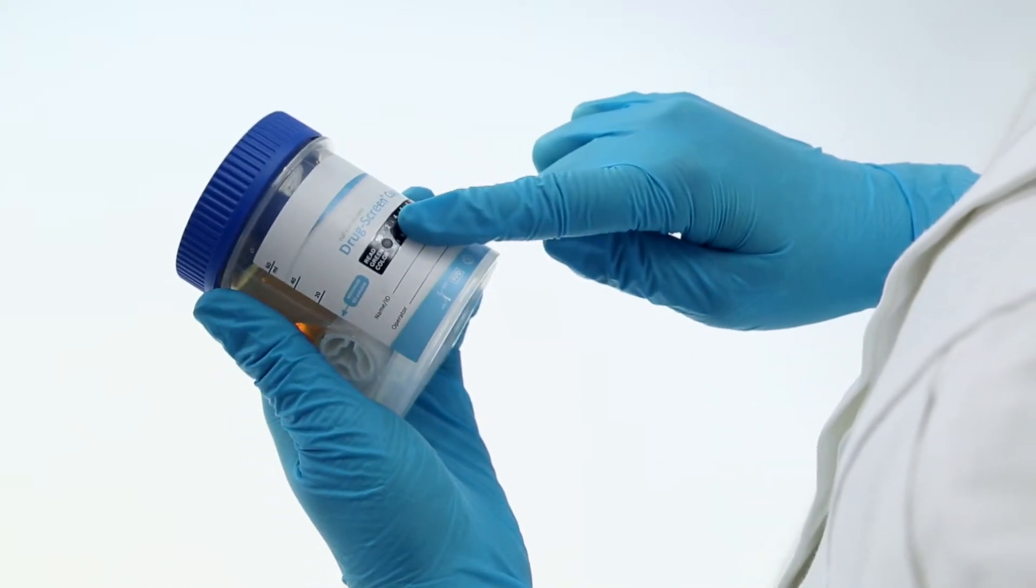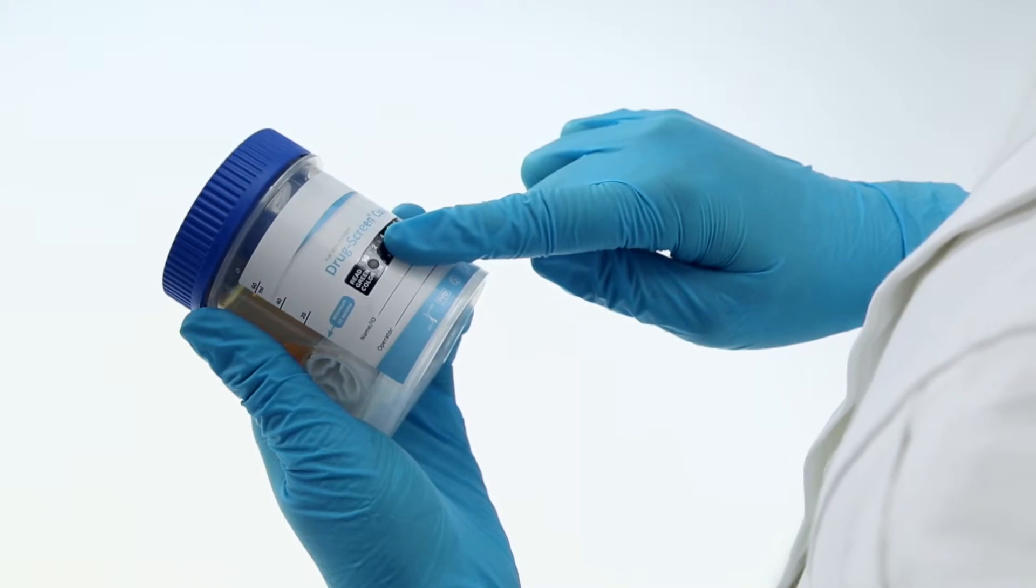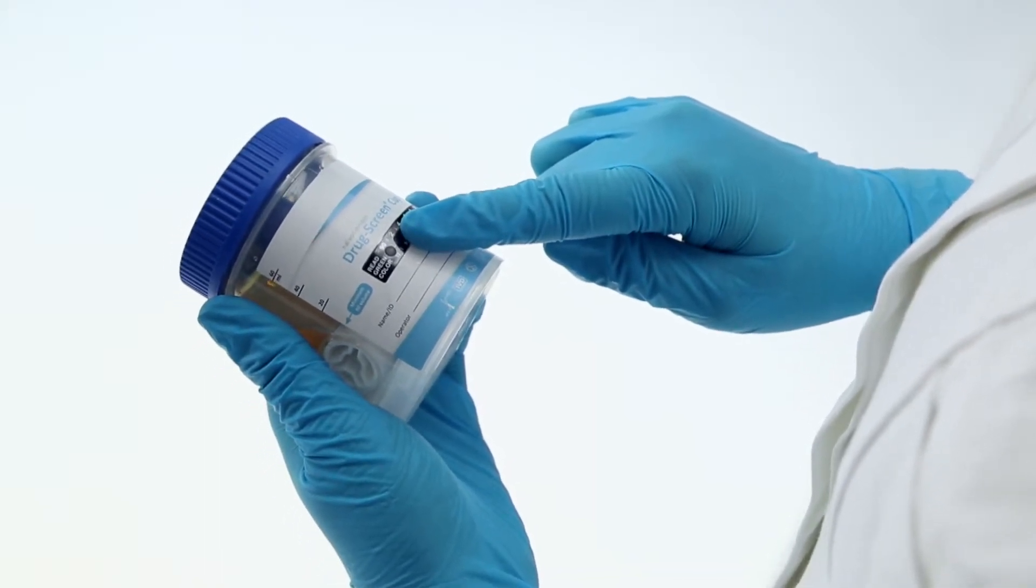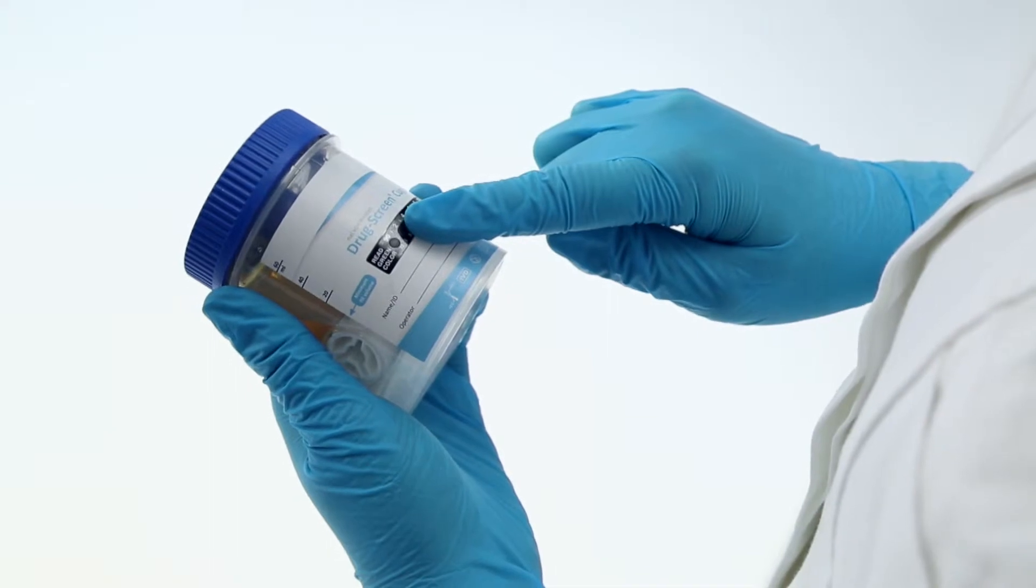Temperature strips integrated into each test indicate where the samples are fresh, that is 32 to 38 degrees Celsius or 90 to 100 degrees Fahrenheit.